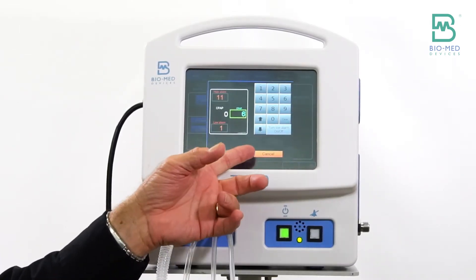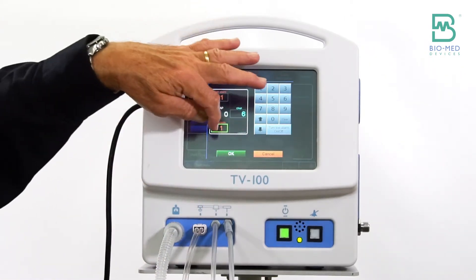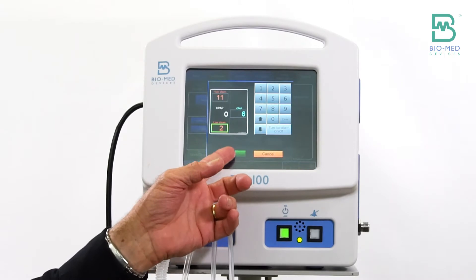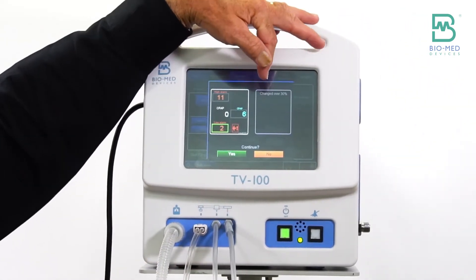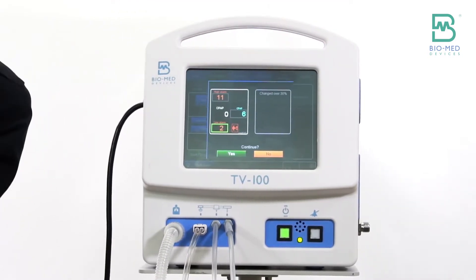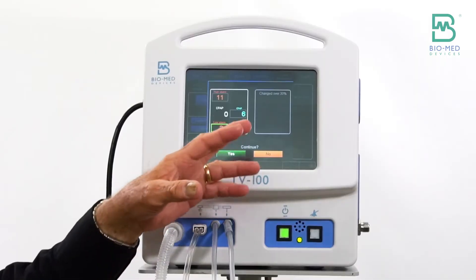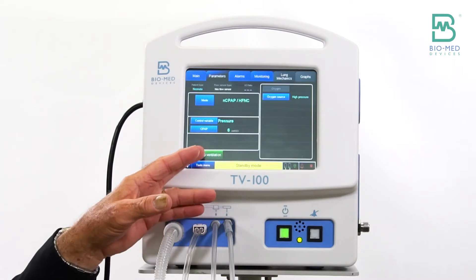Get the box around the parameter you want to change and press okay. I've got 11 and two set at six. Anytime you make a change of more than 30%, it gives you a warning: 'change more than 30%.' A lot of times you're always changing above 30%, but that's just to make sure you're not making a big unintended change — it's a double-check.